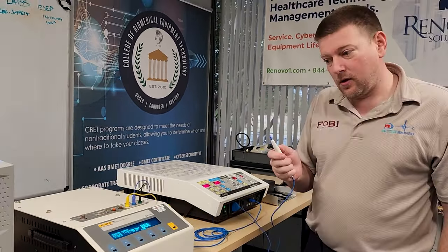There are other conditions in the room we still have to explore: what type of electrical system did they have — isolated power, regular split-phase, or Edison system? If it was a non-isolated system, there's potential for a grounding issue. The surgical table is also now in question — it could have leaked electricity just as easily as the ESU to create a burn. With a grounded patient and a grounded clinician and something moving between the two causing a burn, you have movement of electricity. The utensil's temperature is also unknown — it could even be a freezer burn. There are a lot of unknowns. We do know this unit is doing its job just fine.